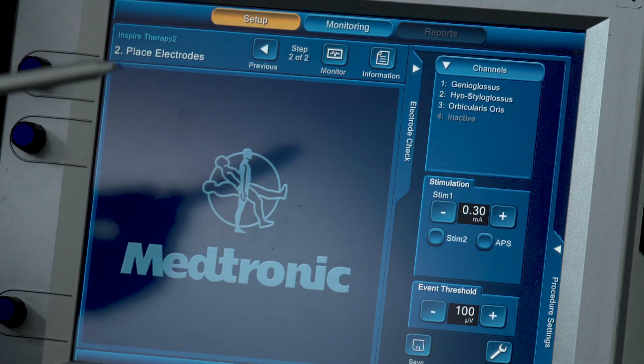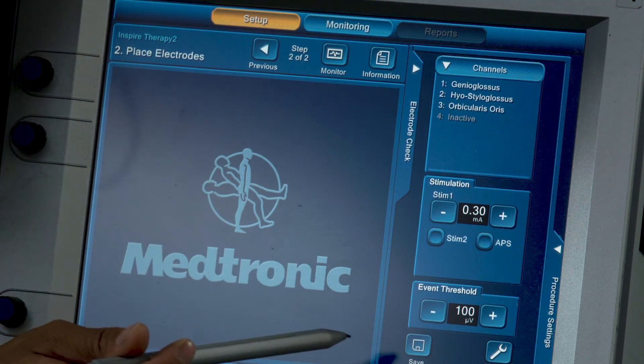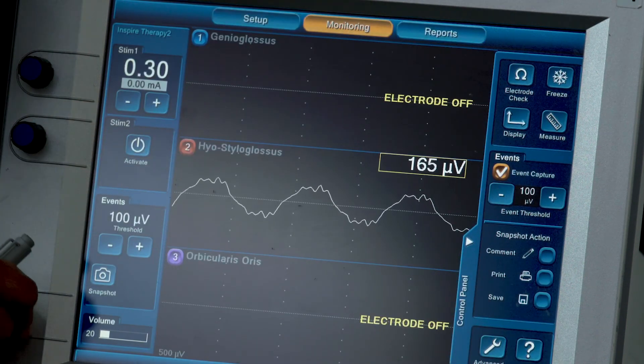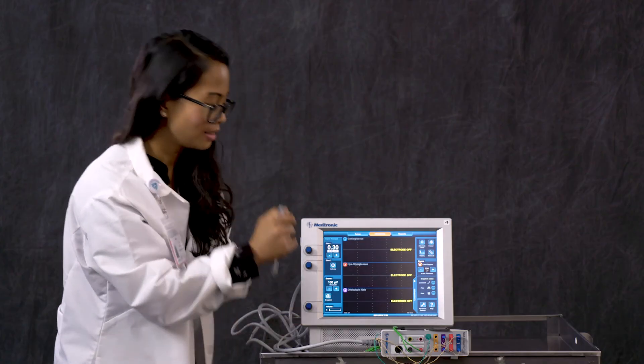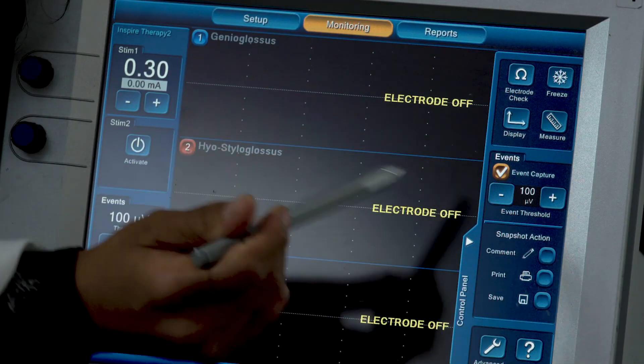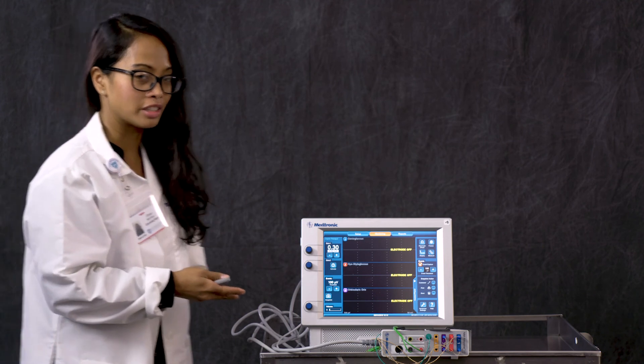So now that we've set up our monitoring settings, we are going to actually go up here to this monitoring tab. I'm going to turn the volume down because you are going to get this crazy sound. This is event capture. This just freezes the screen in real time. But this is all the settings that we've made, as you can see. So now you are ready for monitoring.